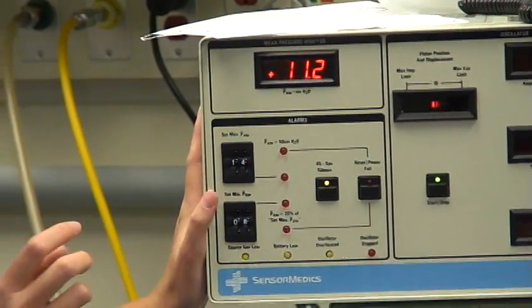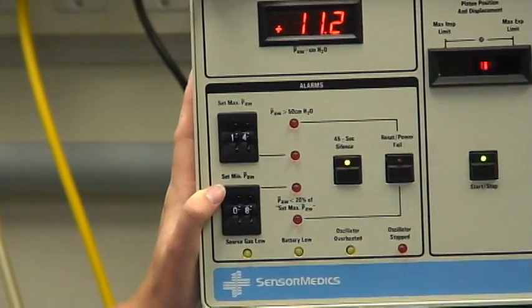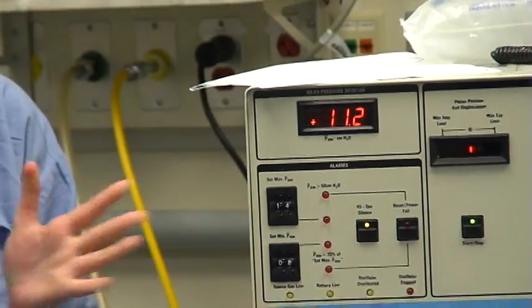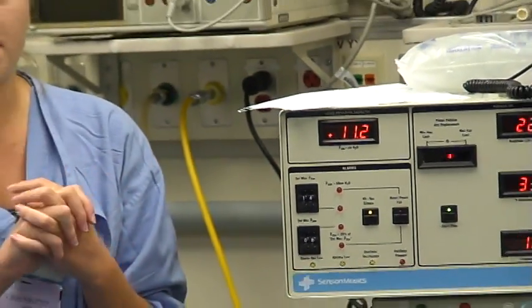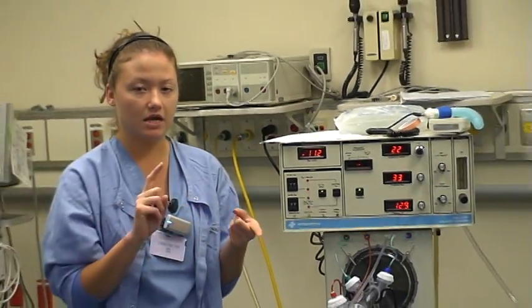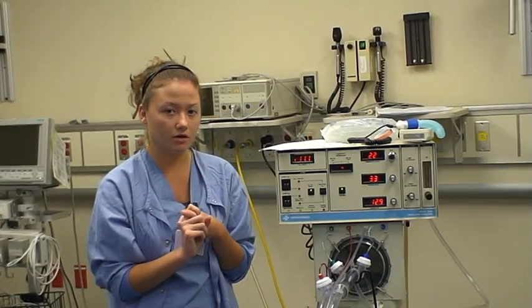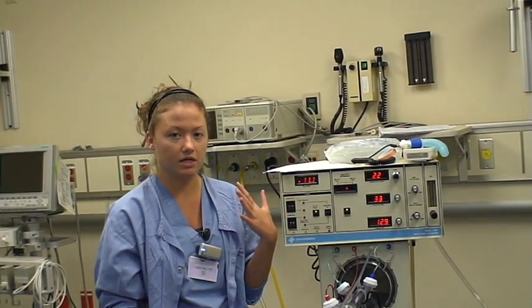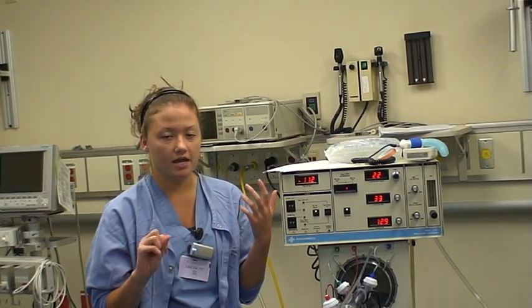After all your settings are done, you're going to want to monitor your patient. This is done by chest x-rays. You want to maintain optimal lung volume, which is seen by lung inflation between eight and a half and nine ribs.